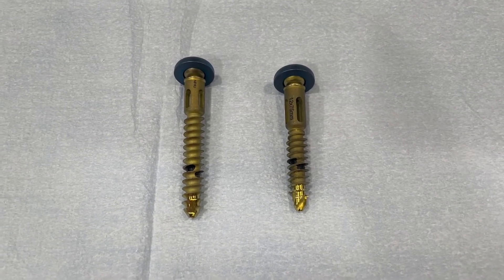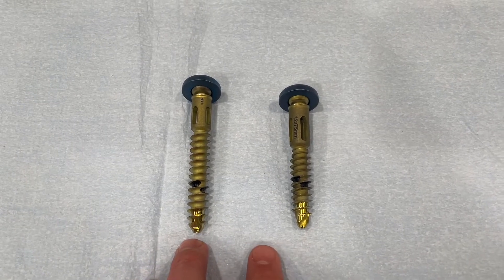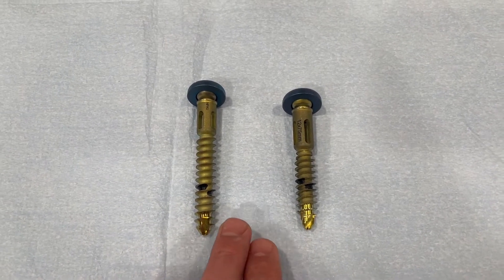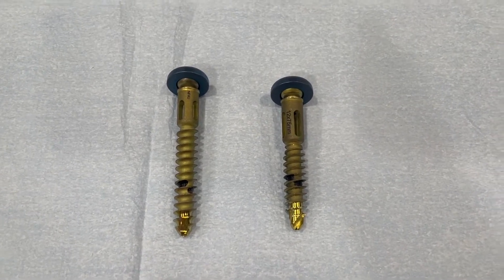Here we have two 12mm SI screws. Both of these are the same diameter, they have the same minor diameter, they have the same pitch, and they've both been marked at a depth of 25mm for a test we're about to perform.